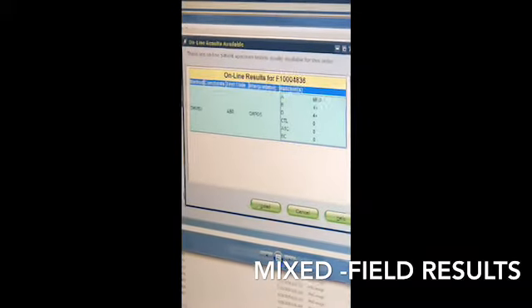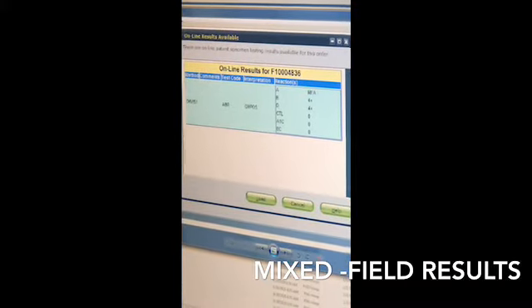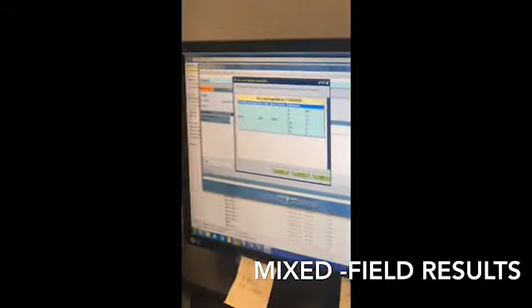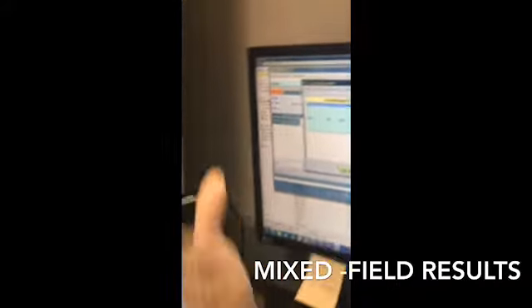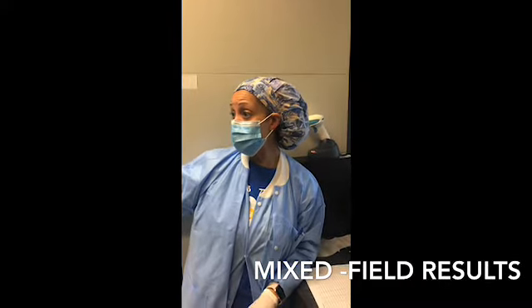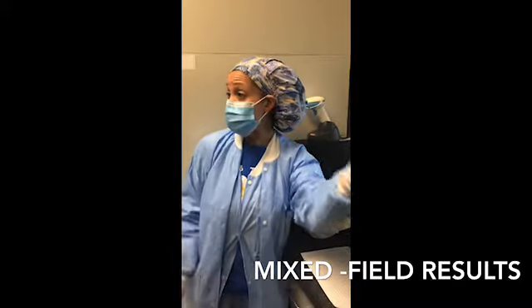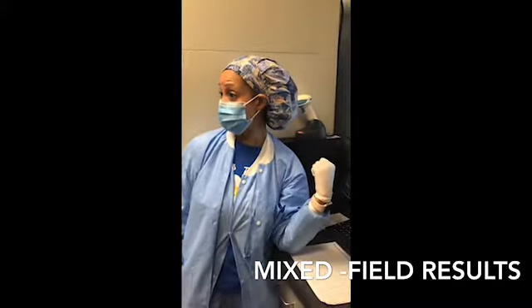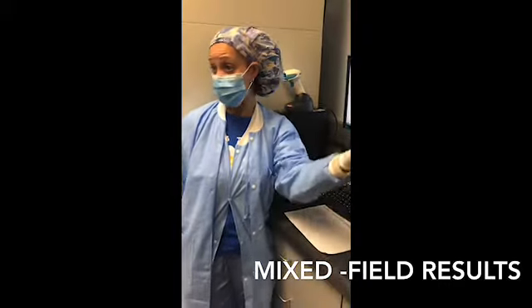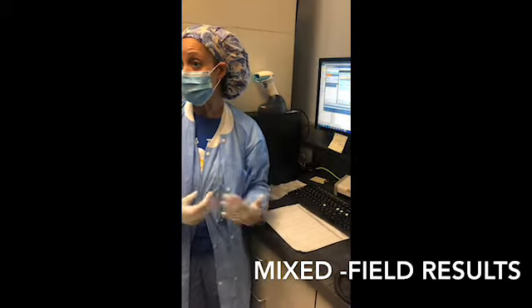Now, if it looks like on the Vision that it called it a mixed field, but it looks funny and you know it's not a mixed field, you can change it to a numerical value. Or if you do it on the bench in the gel card and it looks positive, or it actually looks negative and it doesn't look mixed field, you can still change it on the Vision and send it over. As long as you're doing it with the same method, it doesn't matter if it's manual or if it's here. You get what I'm saying? Just to kind of confirm if you don't know.